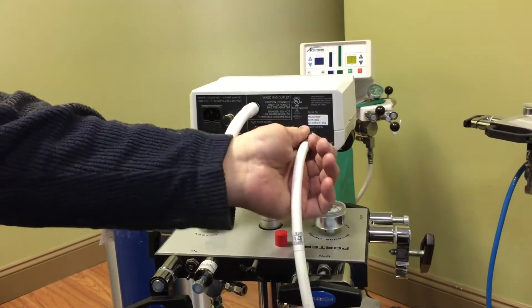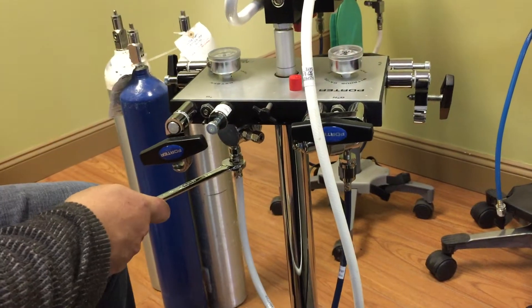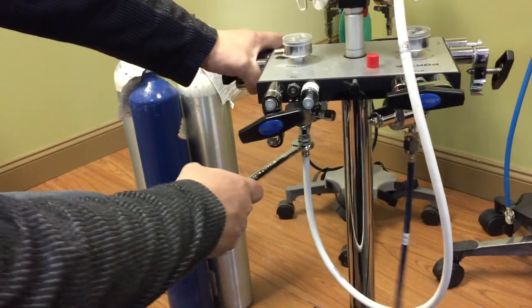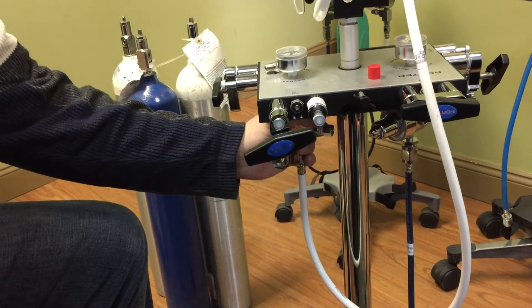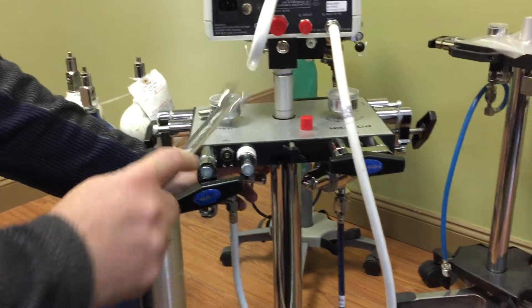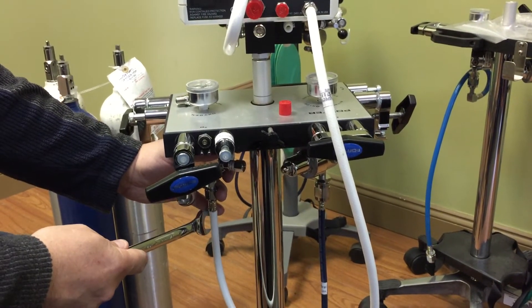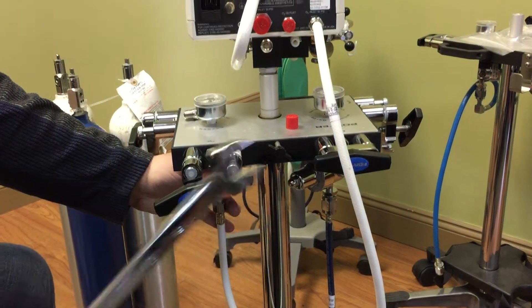And since I was actually here doing that, and I have the key in my hand, I would just go down to the bottom of the unit here, and just make sure that one's snug as well. Now, this one is actually connected to an oxygen regulator. So the high pressure is coming into the stand, coming out here is regulated at 55 psi. Going in at 2000, coming out at 55.